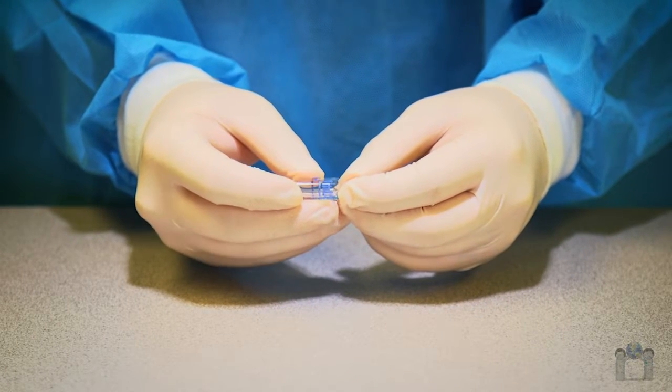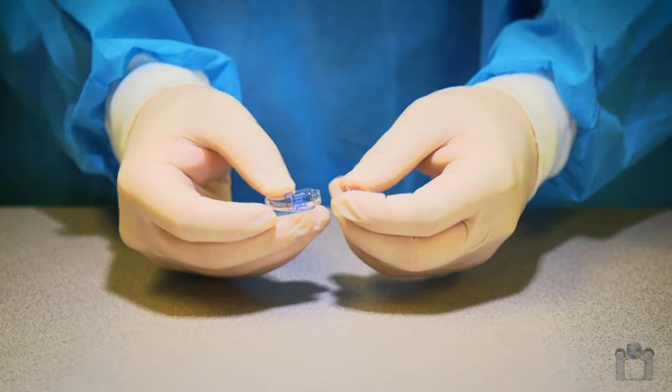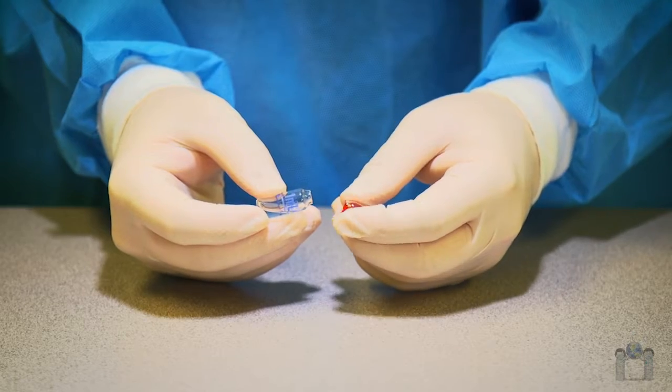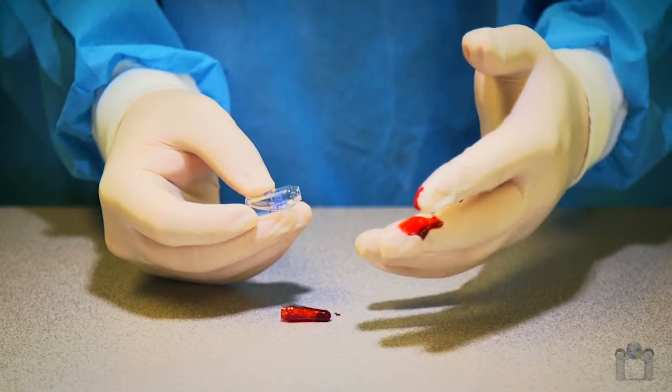If you're not careful, drug handling can be a bit dicey, especially when dealing with ampules, but there's an easy solution to break glass without breaking any skin.